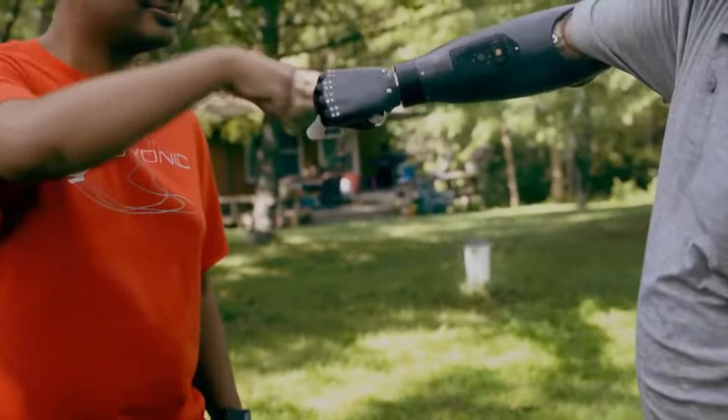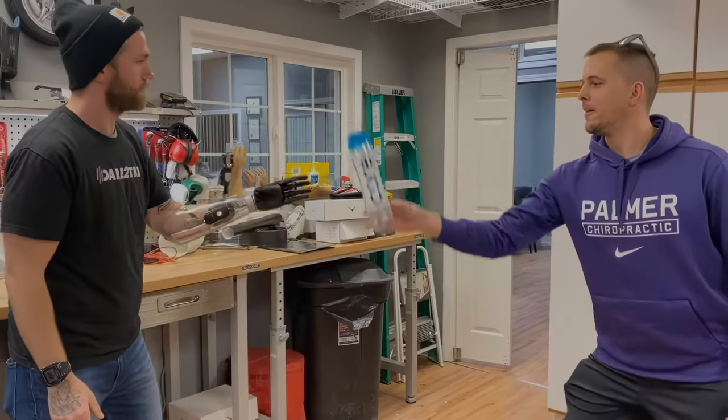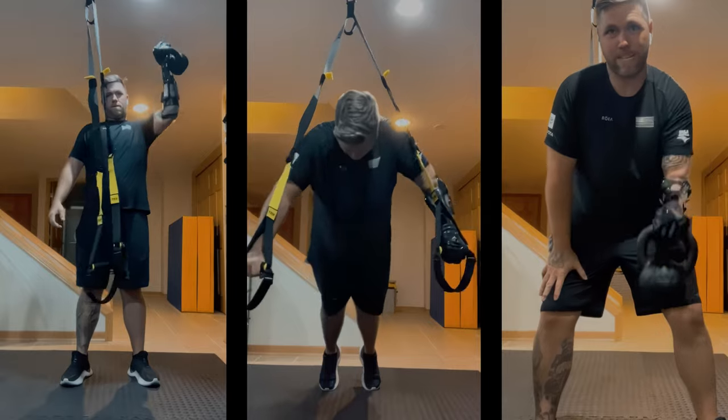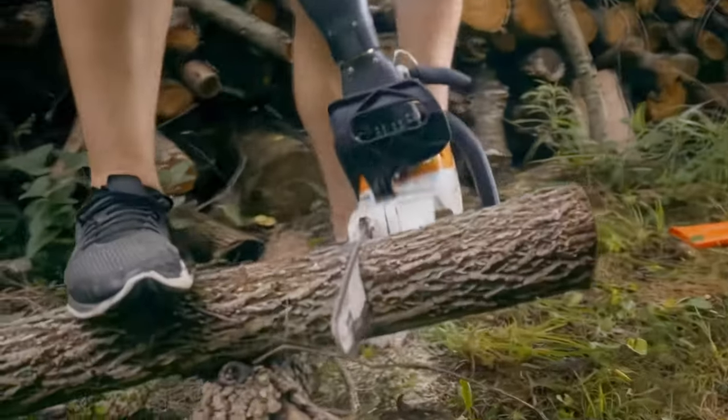So amazing to see people get back part of what they've lost and we've had prosthetic patients actually tell us it feels like a part of them has come back to life. They're able to do things that they were never able to do after their amputation.